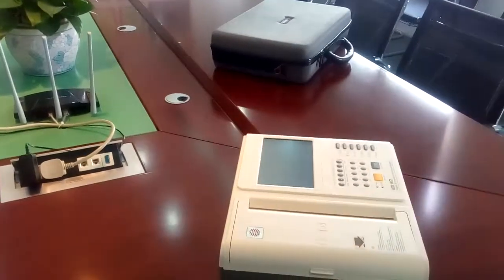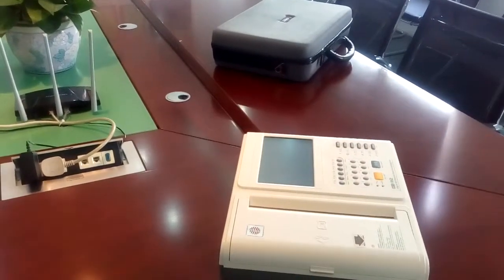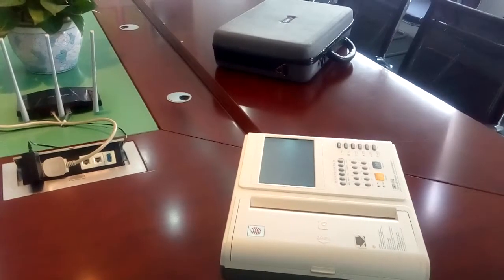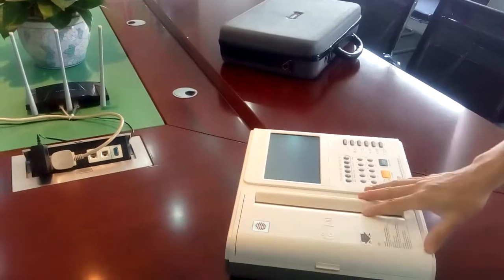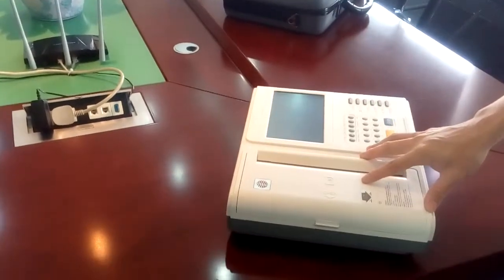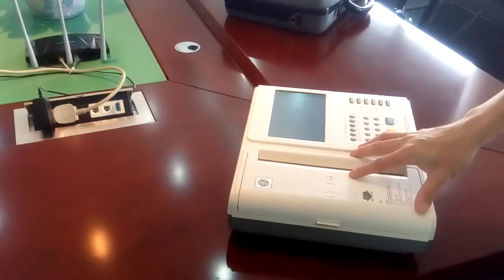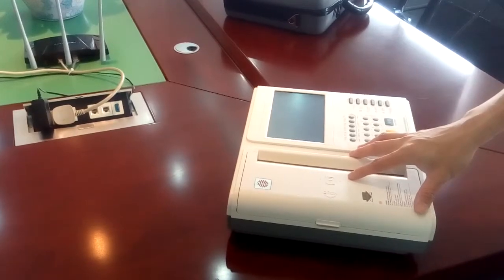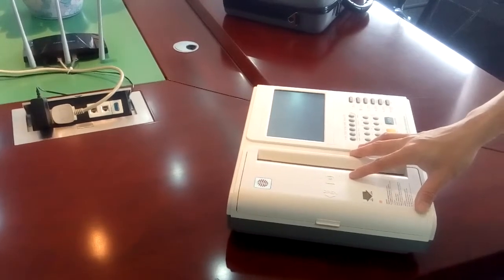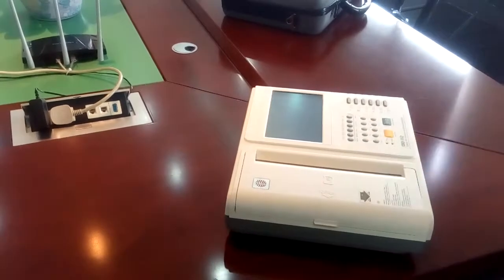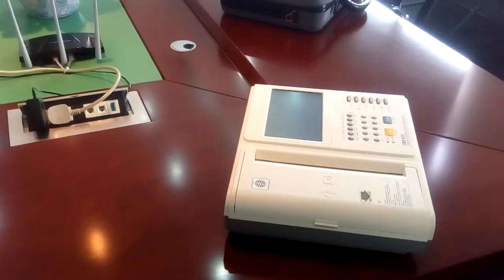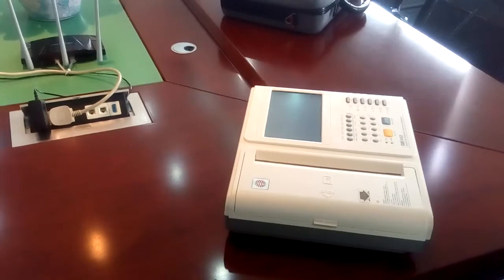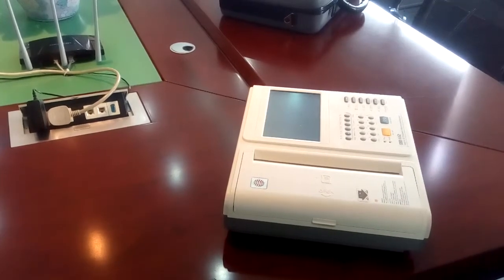CareWell has been manufacturing ECG for about 12 years. We had this question from our distributors and customers: how to use CareWell's ECG to cover different patients, for example pediatric, neonatal, and adult. Today we will take a look at different accessories we should use on different patients.